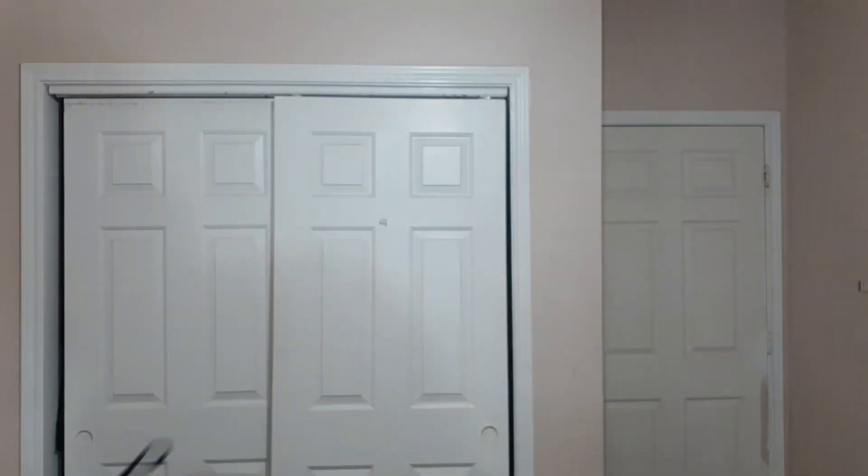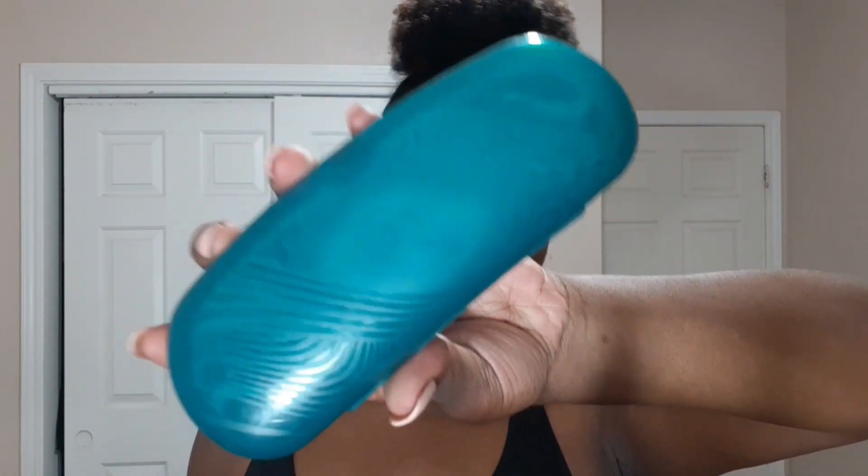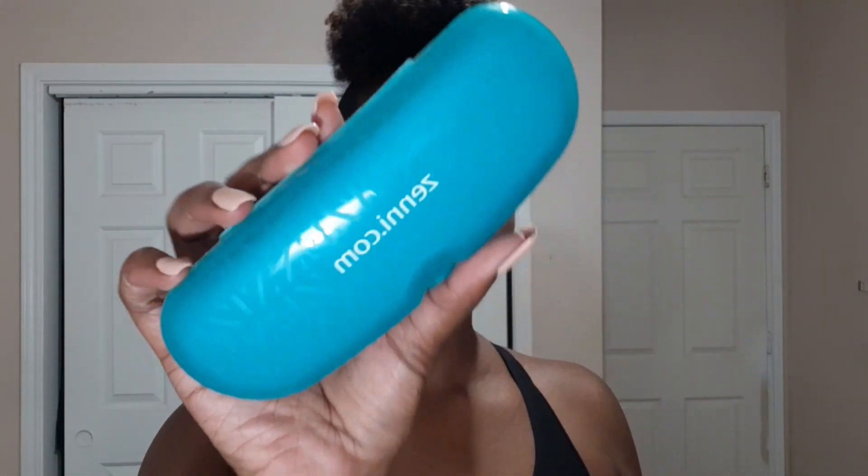Just like always, they came with their own glasses cases — the regular Zenni ones. These actually look different. This is an old Zenni case from 2016, and then these are the new ones. I feel like these look way fancier, way better. It's the same plastic and everything, but these just look way prettier. Let's try these ones out first.